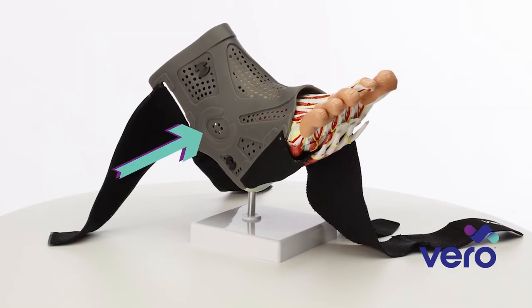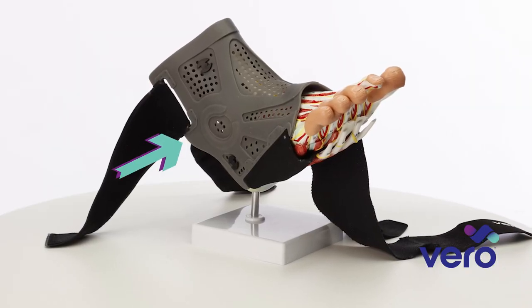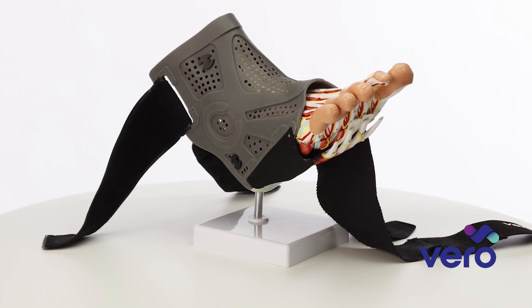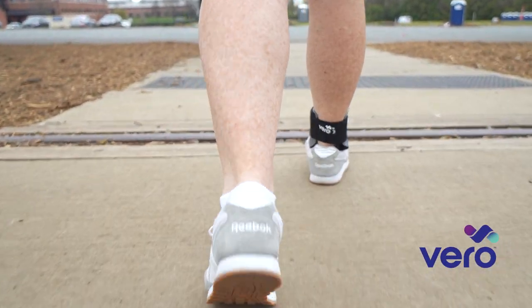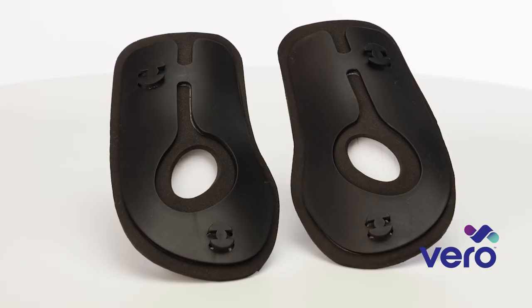If you look right here, you will notice the adaptable hinge designed to match your ankle's natural anatomical ligament restraints. It's another customized feature designed to create proper ankle support. The hinge is the anchor for the biometric bands that replicate the body's normal ligament support.